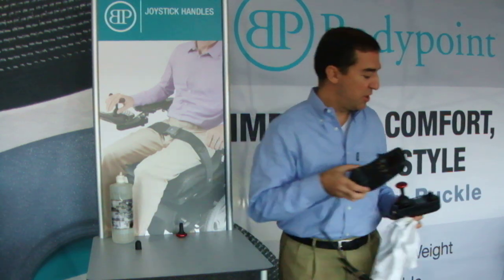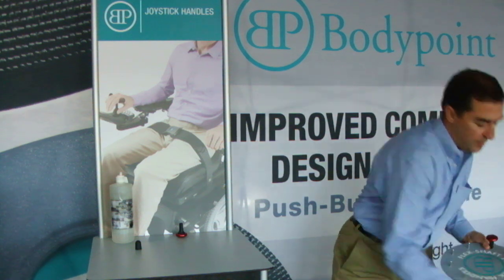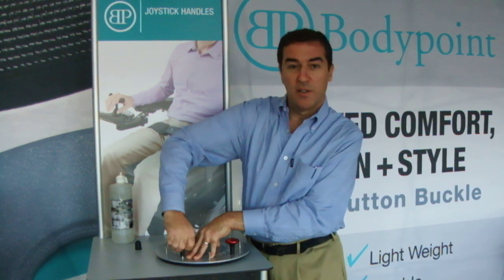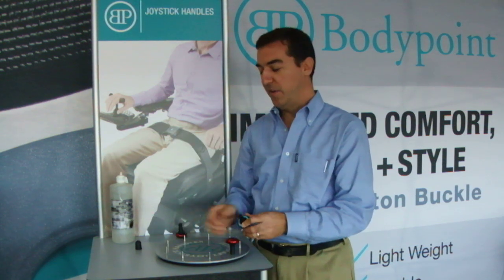I've got a couple of handles here which I installed earlier. You can see that it's really quite strong given a little bit of time for the polyurethane to shrink back down to a tight fit on the stem.